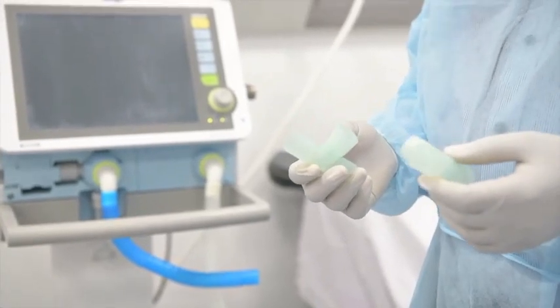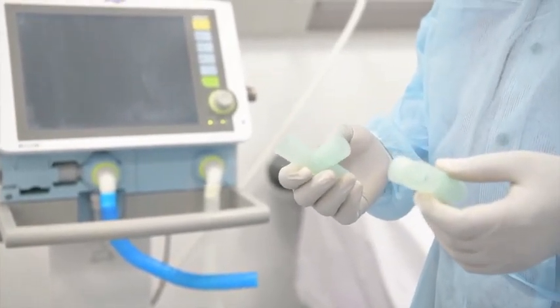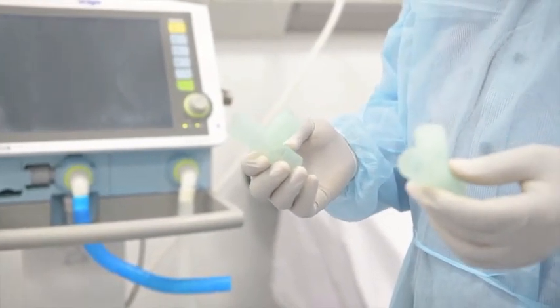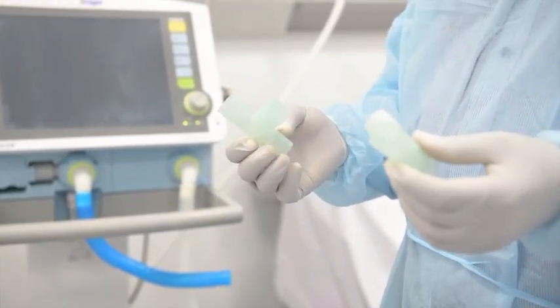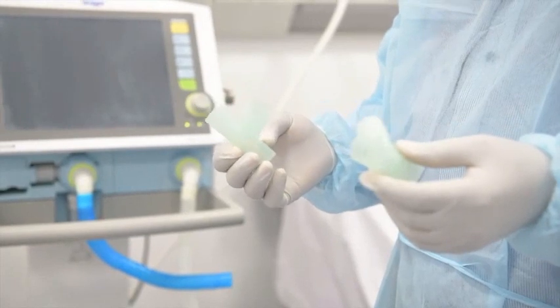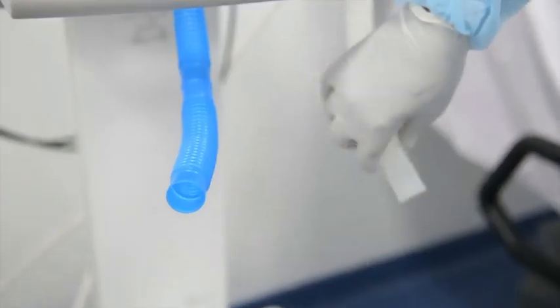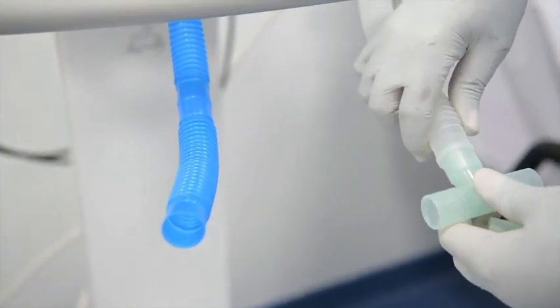If you want to connect two patients to one ventilator, you need two T-piece connectors. Each of these will connect in one circuit which you already connected on the ventilator.